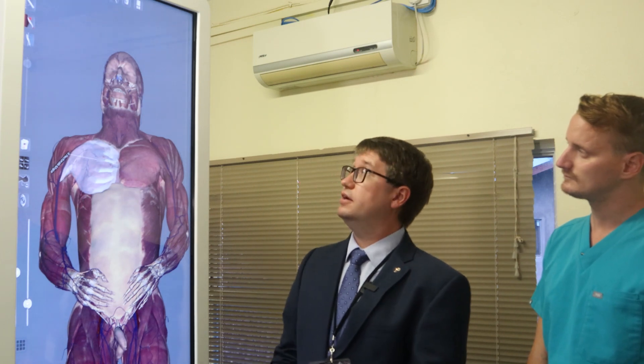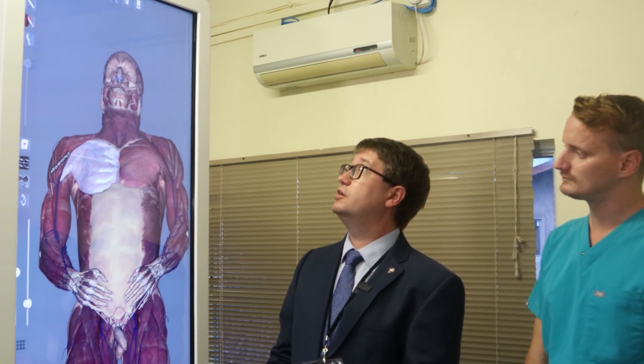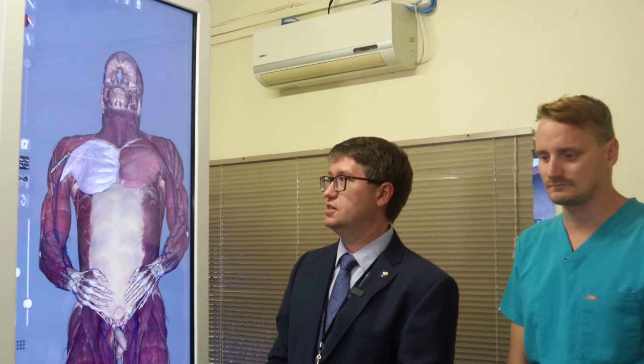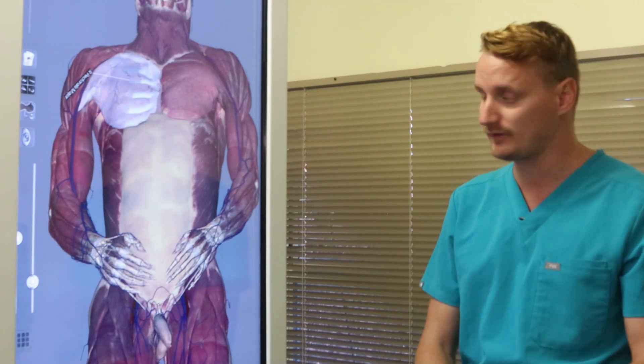So that is a very small set of things that we use on a regular basis during our anatomy labs. From the student standpoint, the Anatomage Table really helps supplement our learning, especially for the lab. It allows us to see structures that are normally too small or that blend in too well with other tissues on the cadaver.